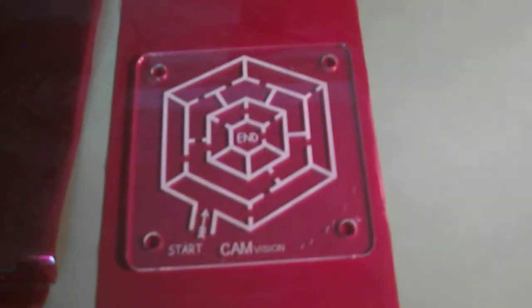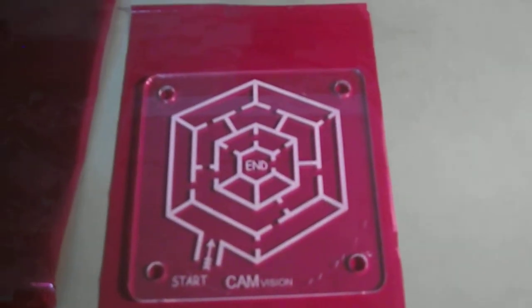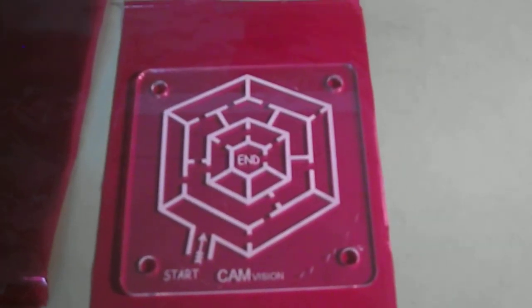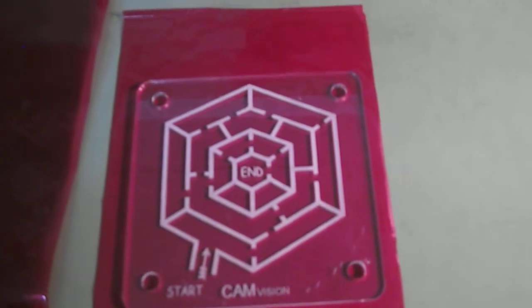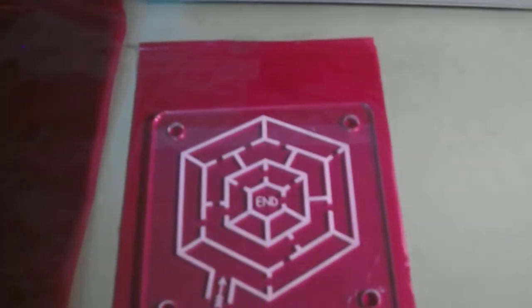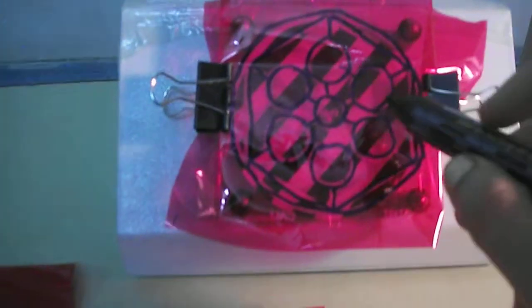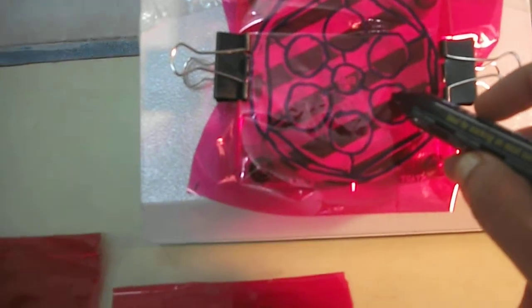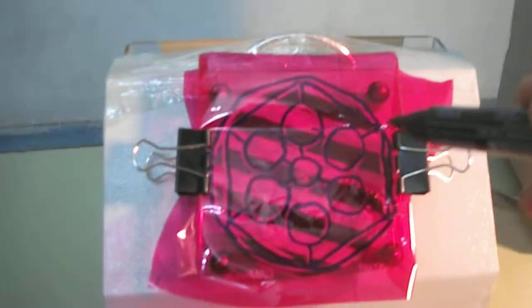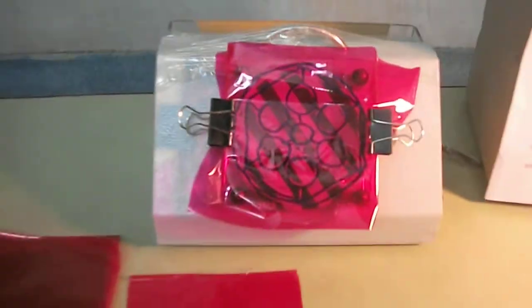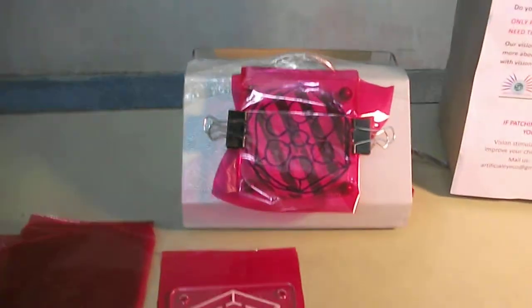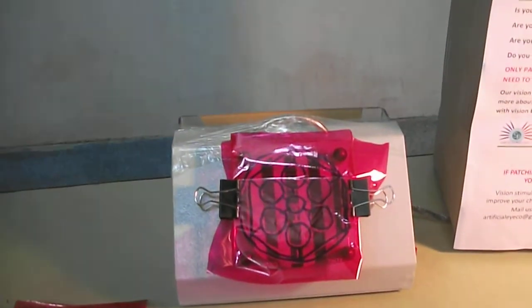This is the second design which is a grating which you will be using. Once you are done, you can do this on alternate days. Do one day this grating, second day do this, again third day do this. That's how you can do the exercise again and again. Thank you.